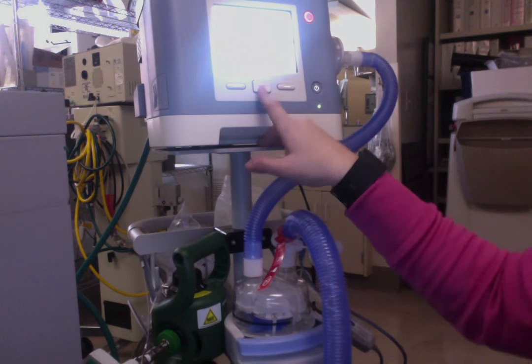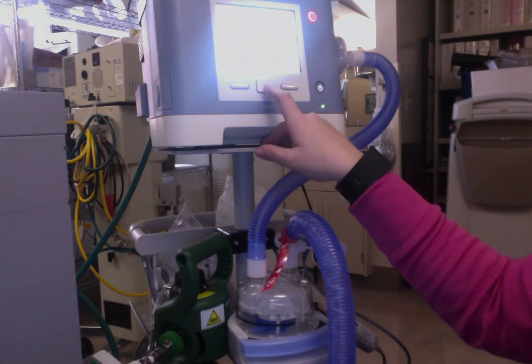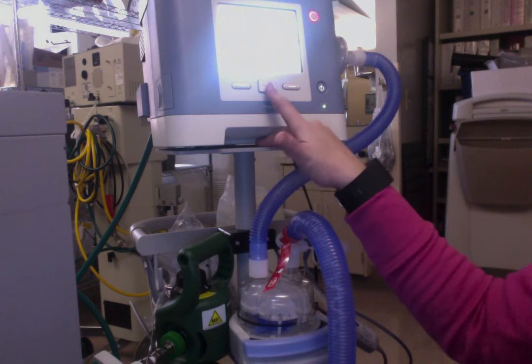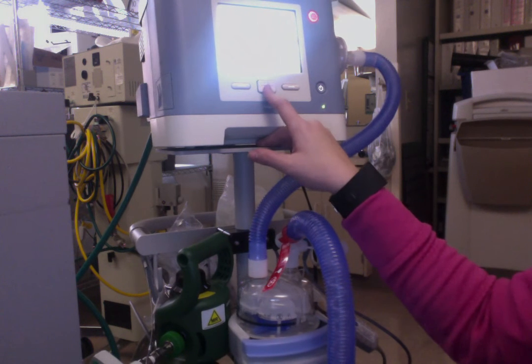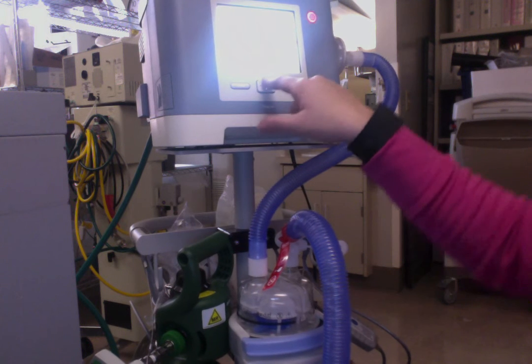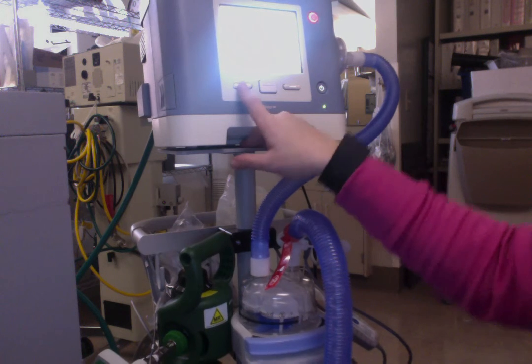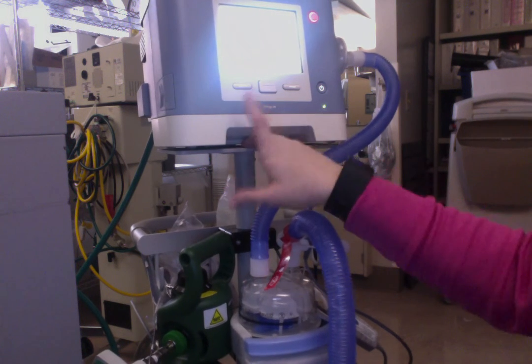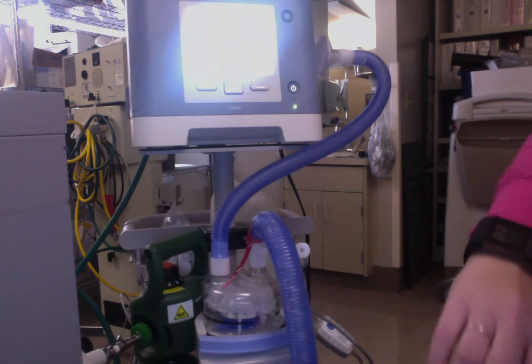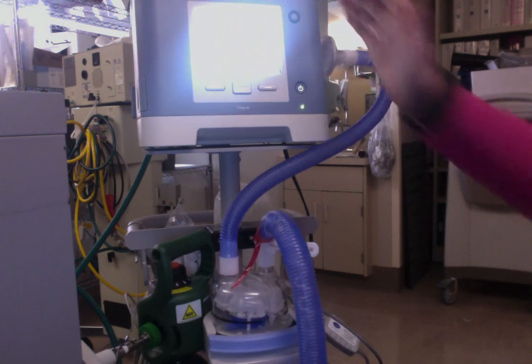I have my low respiratory rate alarm set at 10 and my high respiratory rate alarm set at 40. And that is all of the alarms that I have on this one. Then I can just hit finish and exit, and it will start ventilating for my patient.